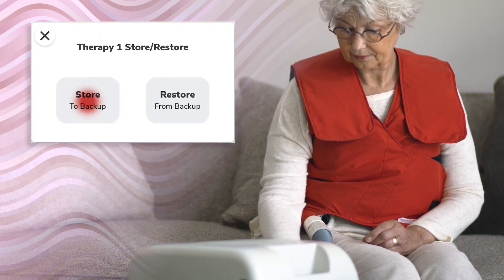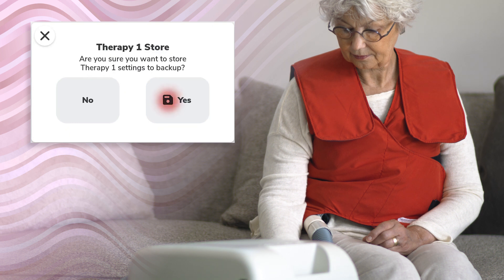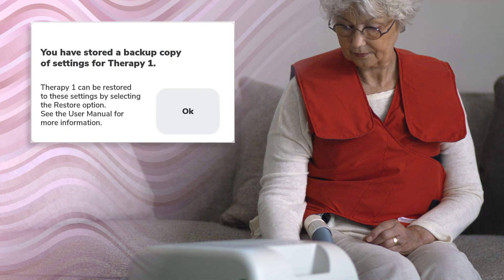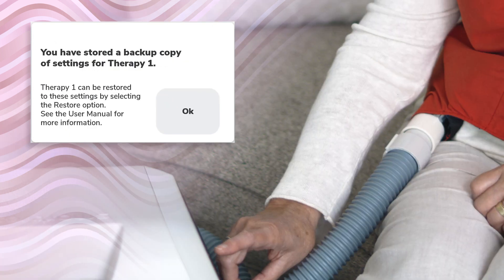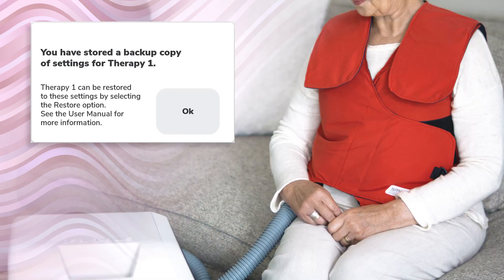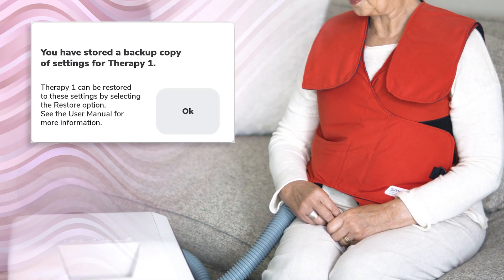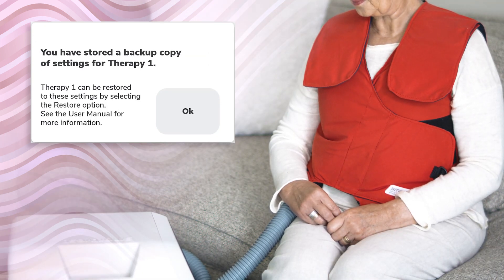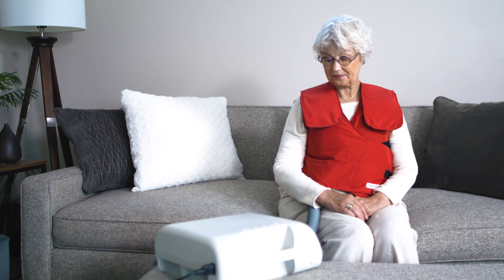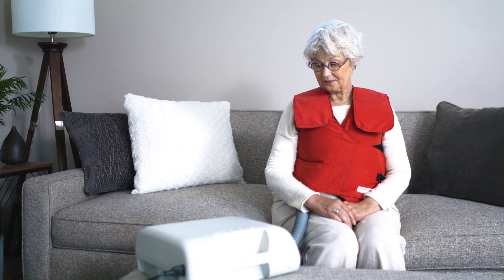Tap on the Store to Backup button and tap Yes to confirm your selection. It is important to note that therapies programmed on a new device are automatically stored when the therapy is created. Additionally, the device will automatically store settings after therapy has been performed 30 times without any changes.